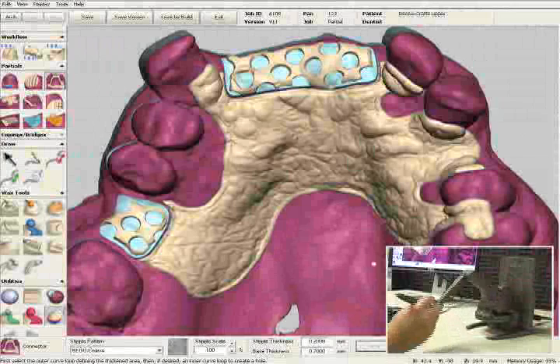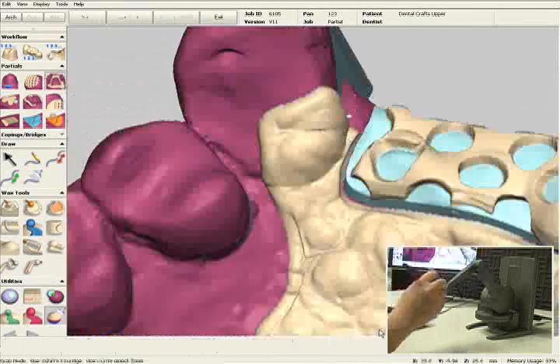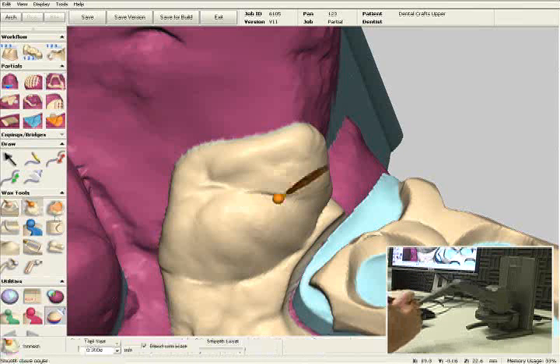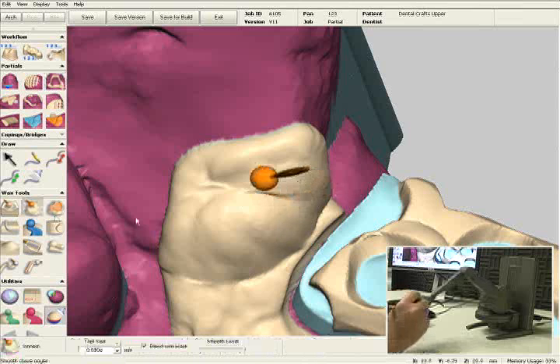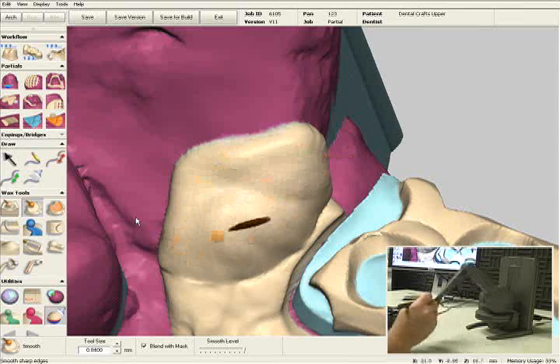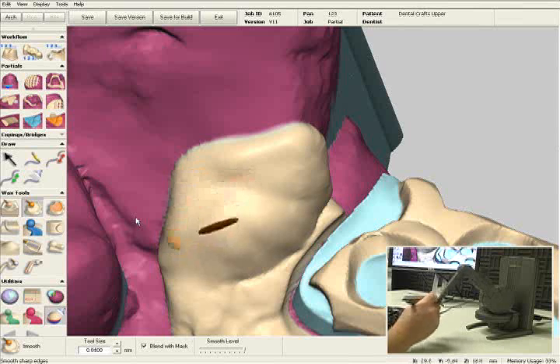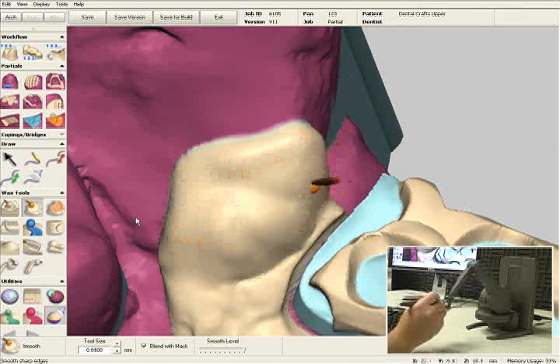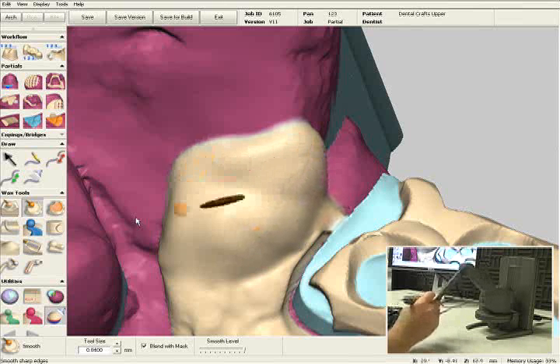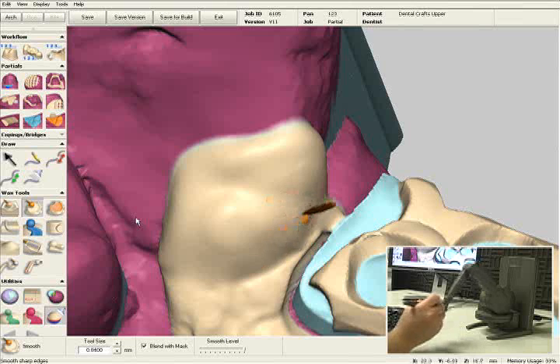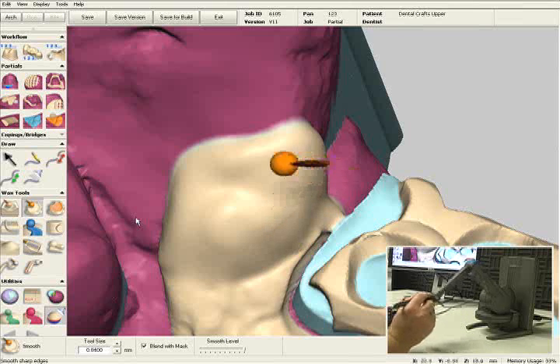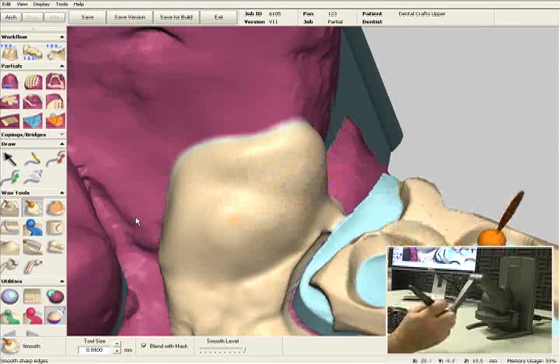The next step is I'm going to smooth out this lingual plate right here on number 7. I'll select the Smooth tool and make it a little bit larger — it's very easy to smooth this out. As you can see, it doesn't take a long time to get rid of that stipple on the lingual plate. This is why I like to draw my outline on lingual plates, rest seats, and minor connectors — it saves me a couple of minutes — and as you can see, getting rid of the stipple really does not take a lot of effort or time.